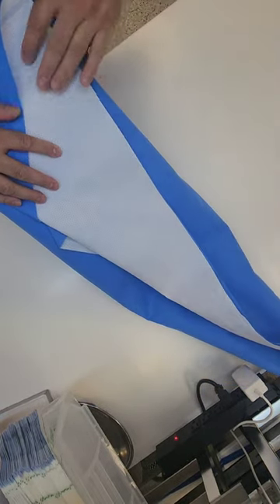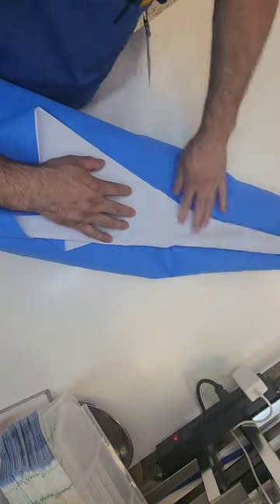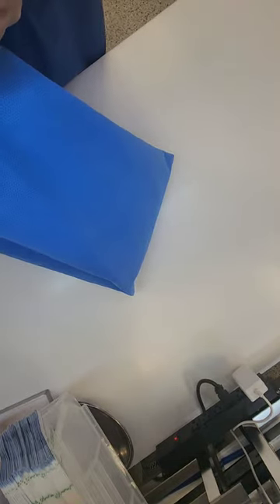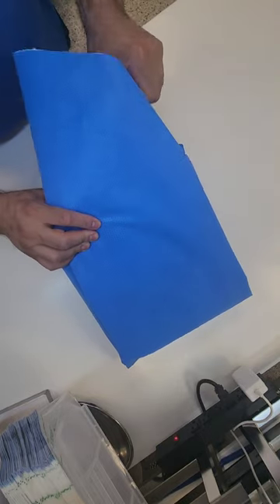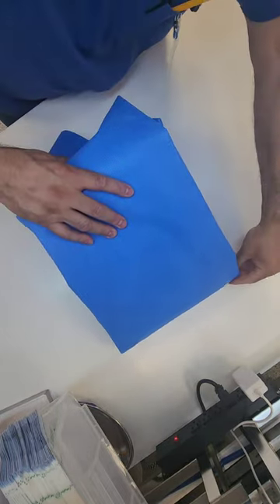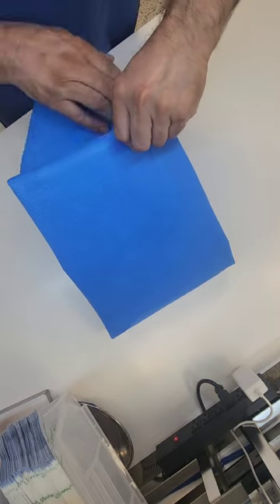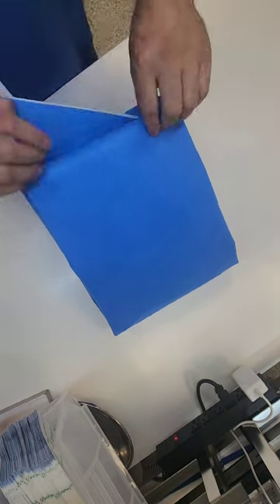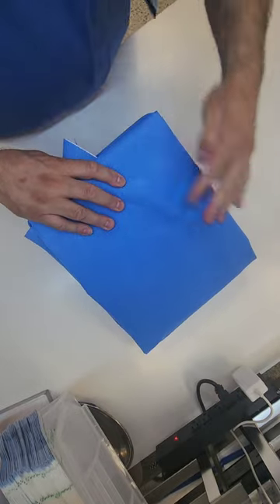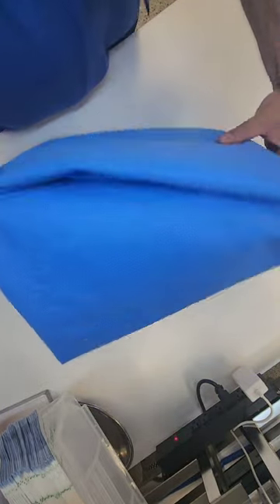You're going to create your tails again. You see that overhang? You're not going to worry about that overhang. Now to finish up, this is very easy — just flatten up the top here. You don't have to worry about tucking those corners in; you're just going to fold that whole piece over to the front. I like walking my sides out to get complete coverage — not necessary, but it just looks a lot neater when you wrap a triangle. And then you're going to tuck over the front, tucking over the original two flaps. You don't have to worry about the overhang because when you tuck over and create that little tongue, it's going to look all nice and pretty. Just iron everything out, smooth everything up, and that's it.